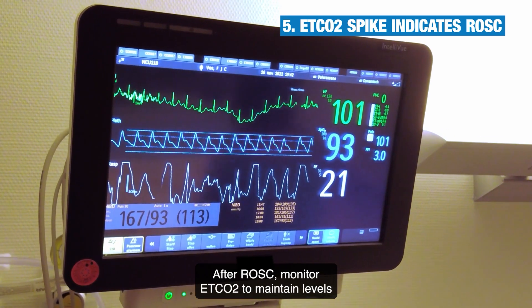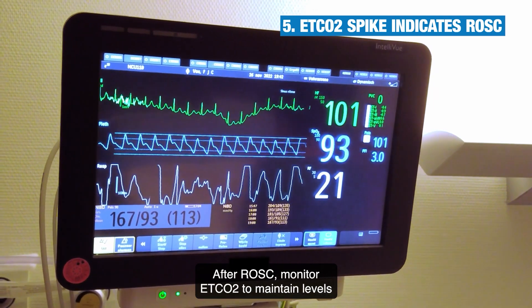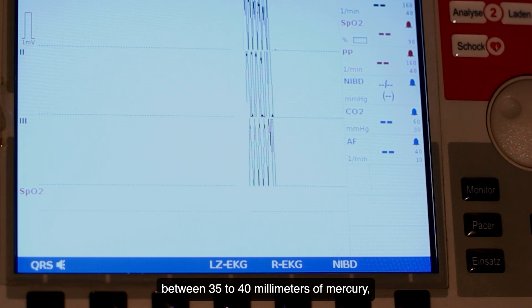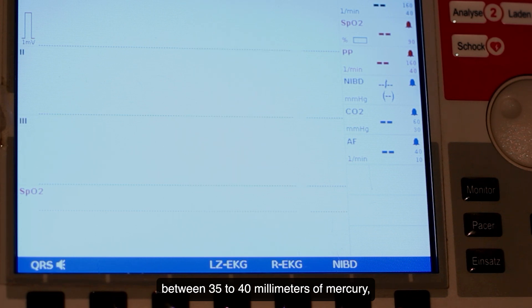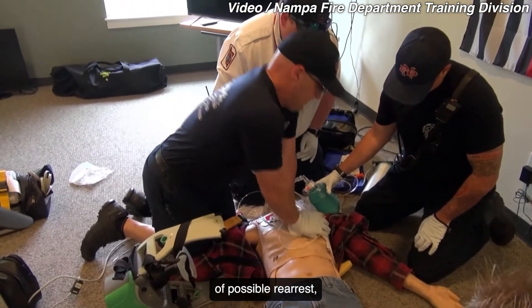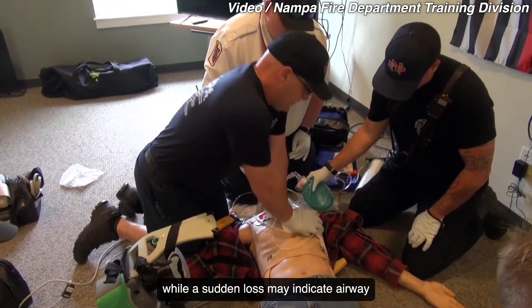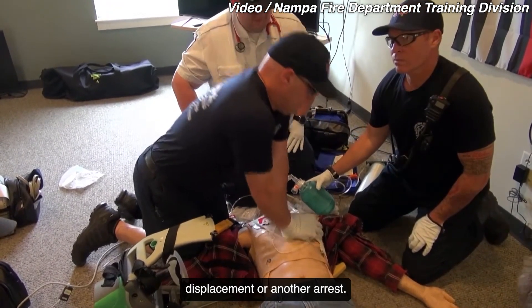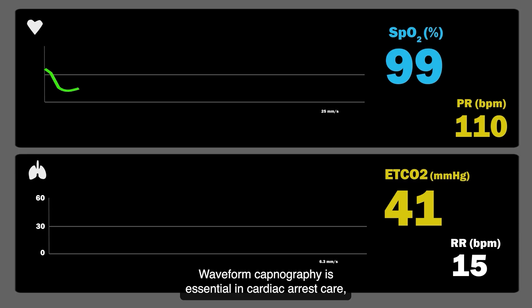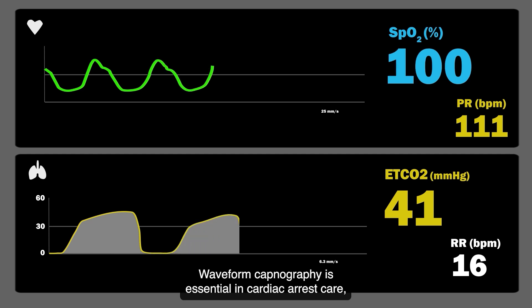After ROSC, monitor ETCO2 to maintain levels between 35 to 40 mmHg. A gradual drop warns of possible re-arrest, while a sudden loss may indicate airway displacement or another arrest.